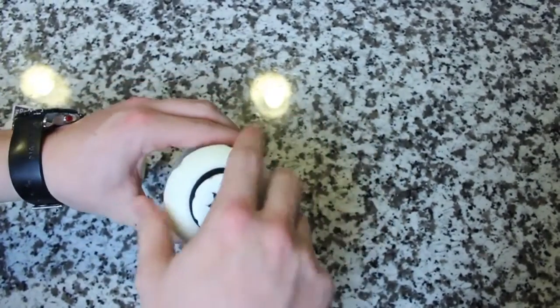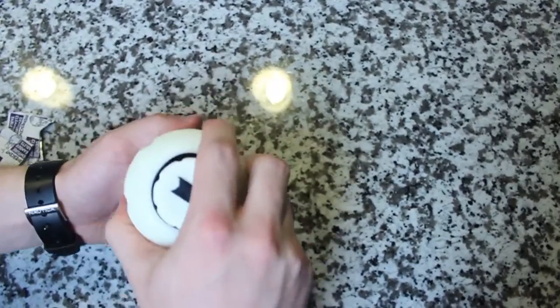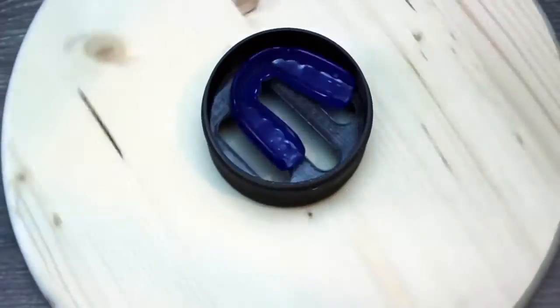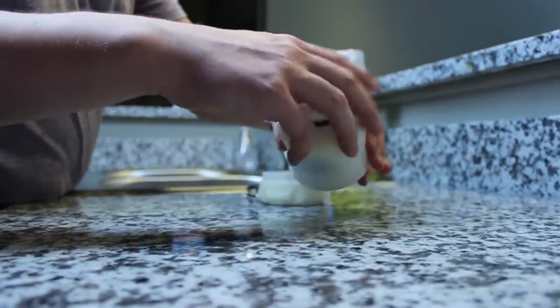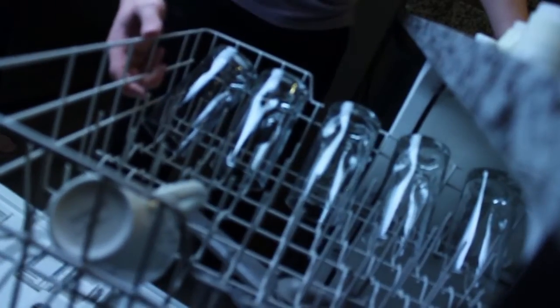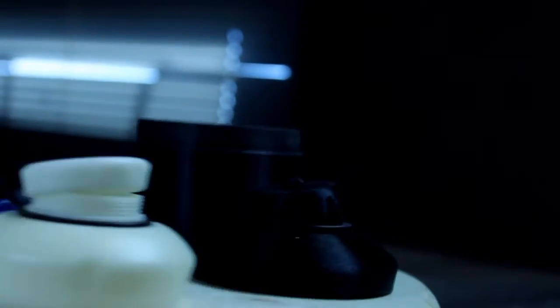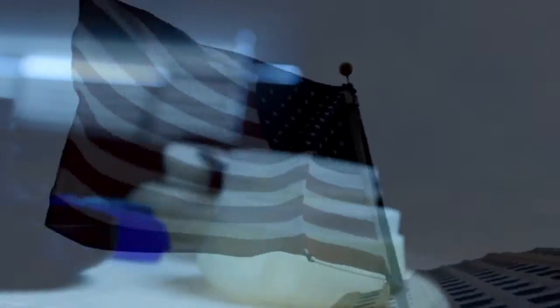Our case features a convenient way to store and clean your oral appliance. The wide circumference is versatile enough to fit any mouthguard or oral appliance. It has the ability to be disassembled, is dishwasher safe, and uses antibacterial plastic. We also plan to manufacture in the USA.